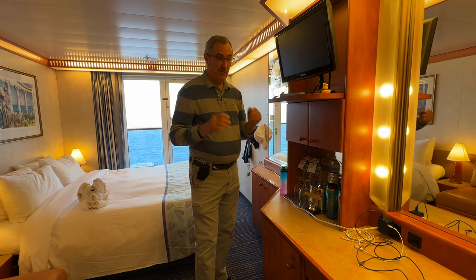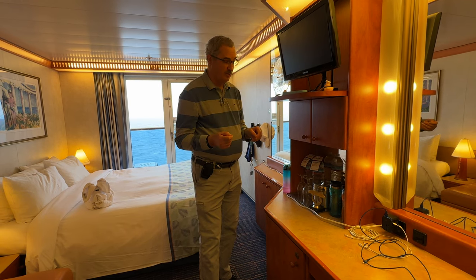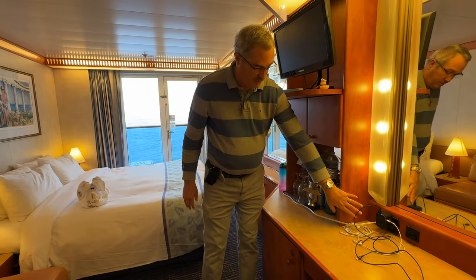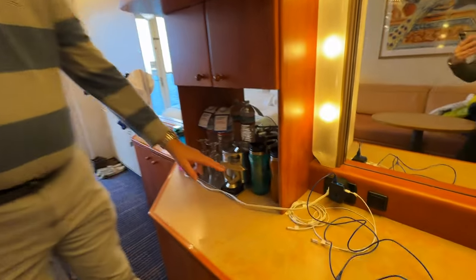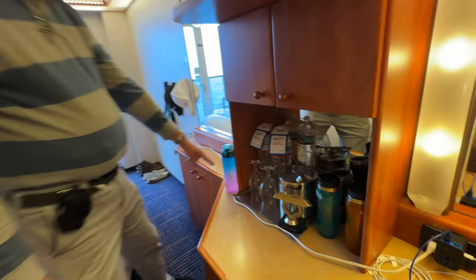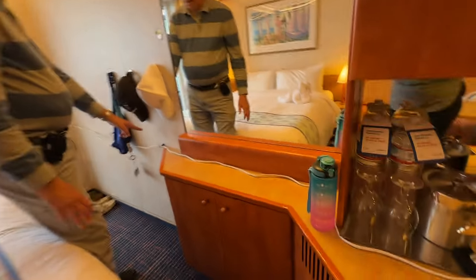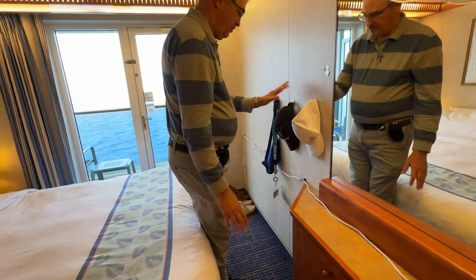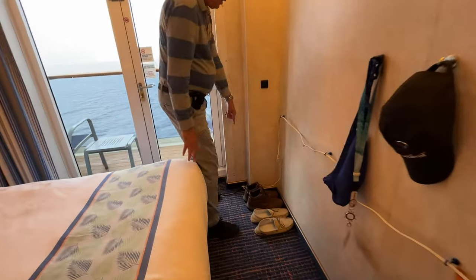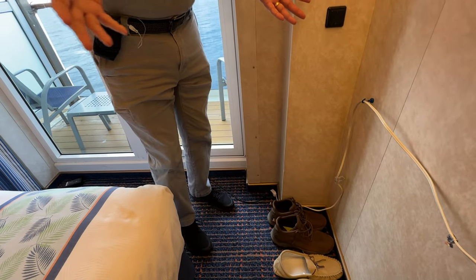As mentioned in a previous video, we use a 15-foot extension cord to reach the CPAP on the bed. The extension cord is plugged into the 110 outlet, and we've got cables for plugging in mobile devices. That cord reaches across the countertop and around the corner. We use magnets to hold it up off the floor to keep from tripping over it, and the plug end sits in the corner.